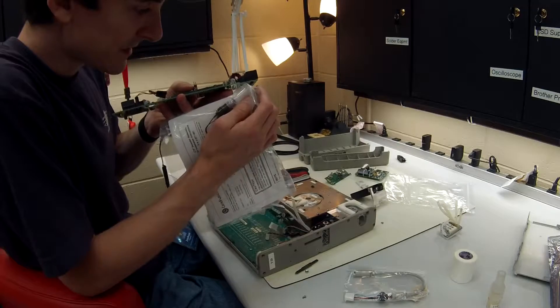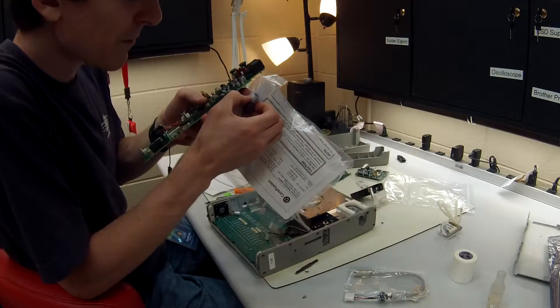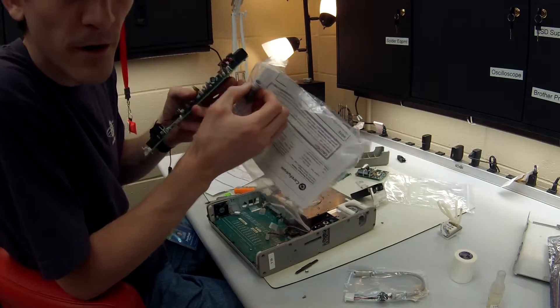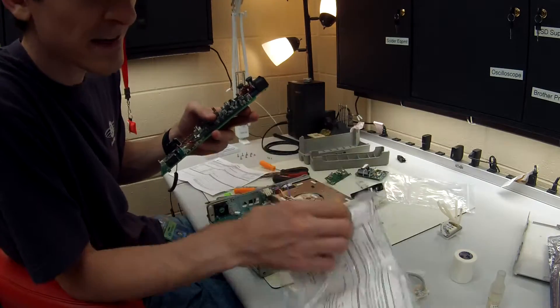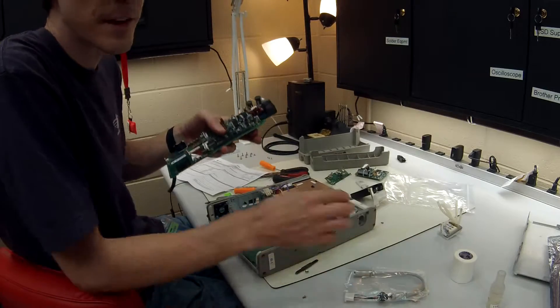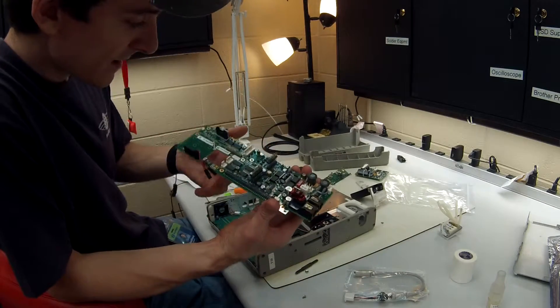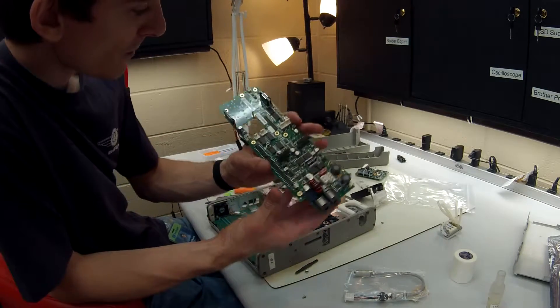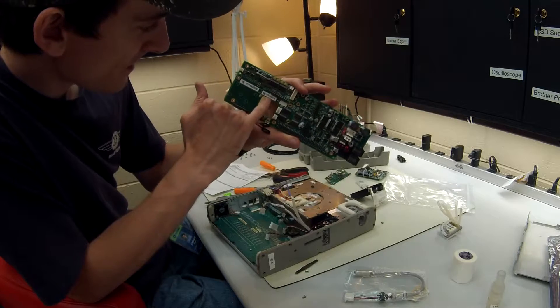It'll usually say PN for part number. Part number is not what you want, you want SN. It's kind of confusing, I've messed it up before. Now the number that we want to record for here is not this number right here, it's the number on the left side.